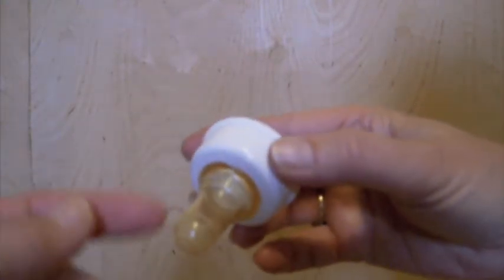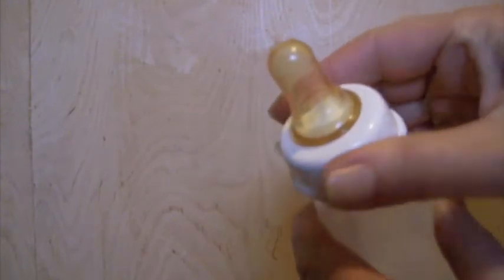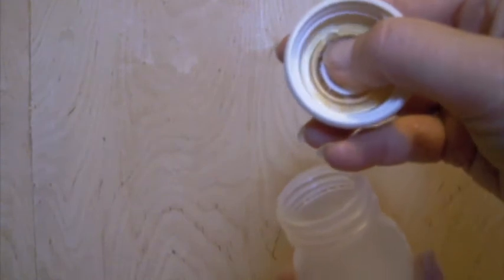When the nipple is aligned for the baby, there's a notch that aligns with the baby's nose. The top of this nipple is hard and the underside is soft, and that's key. When putting the nipple on the bottle, you have to make sure that you don't over-compress it, because the vent will be collapsed and the nipple won't work properly. You want it on snugly, but not too tight.